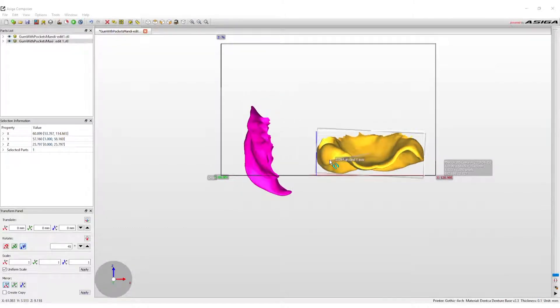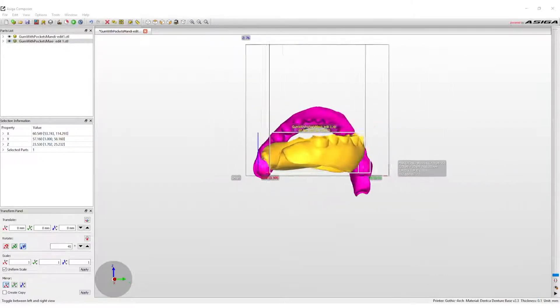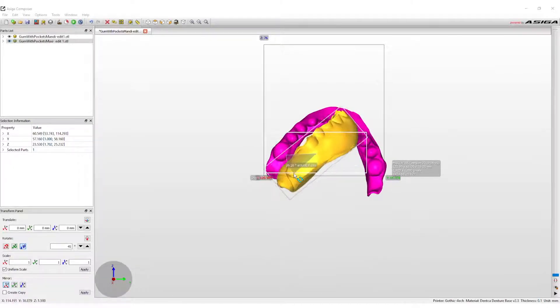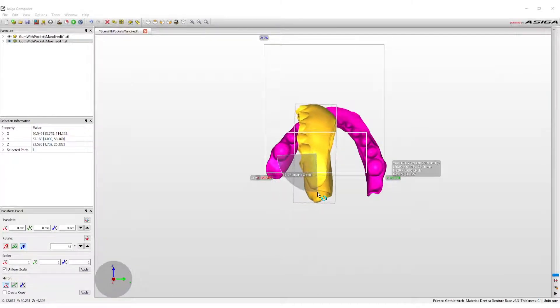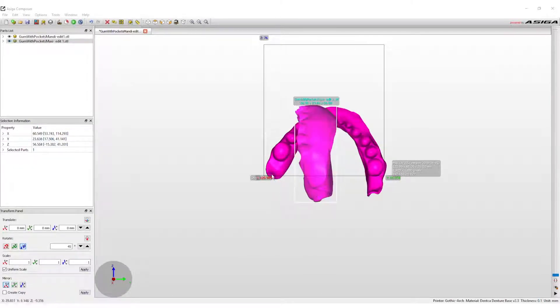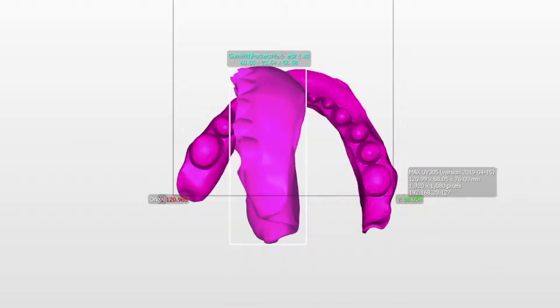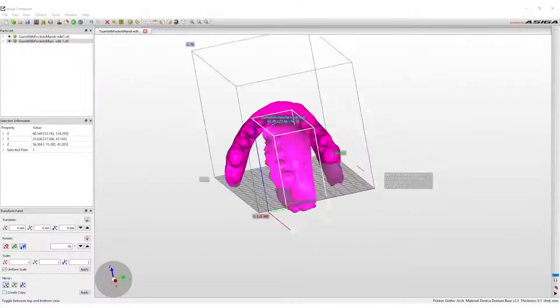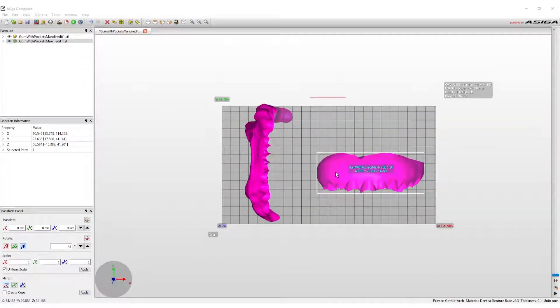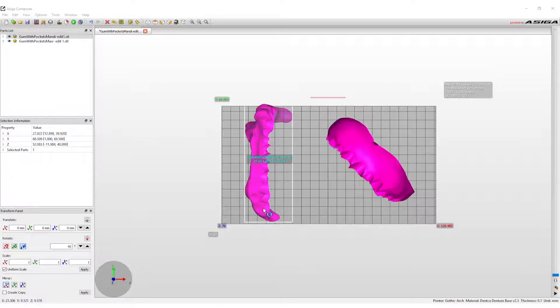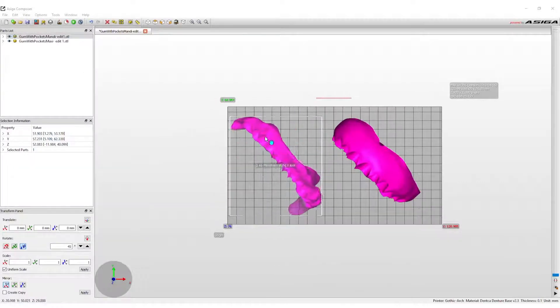View the dentures in the front view position to maneuver the design into proper placement. Left-click on the design that will be rotated — in this example, the lower denture base. Now right-click on the base and hold as you move the mouse to orientate the denture base. To level out the upper denture plate, view the print envelope from the right side, then left-click on the design. Now right-click and hold as you maneuver the design into proper placement. Notice the design turns pink when it's moved outside of the print envelope.